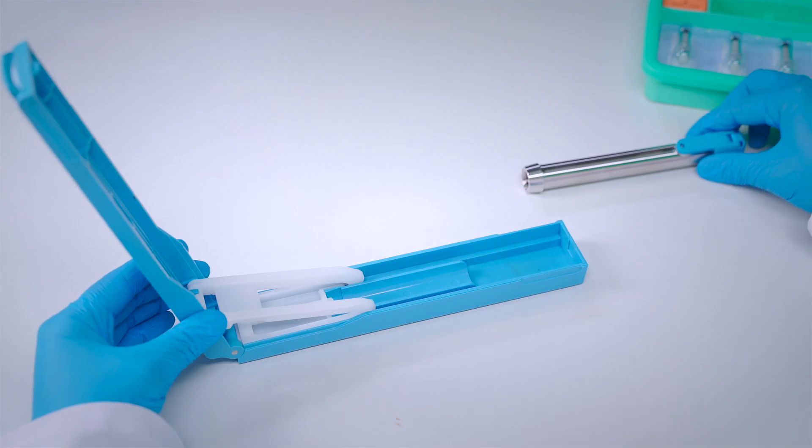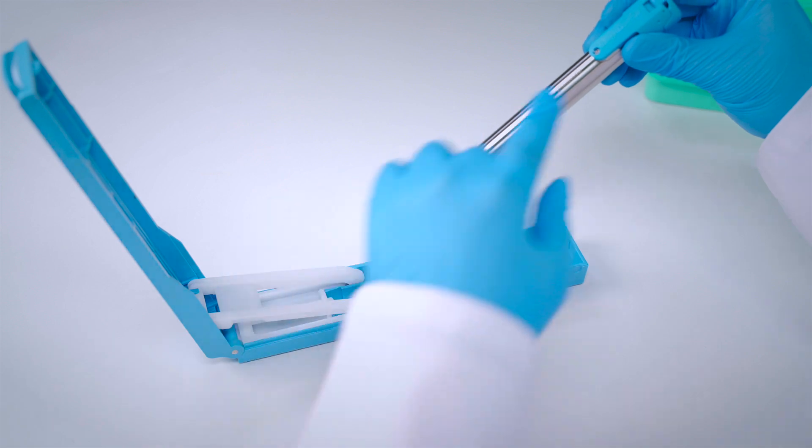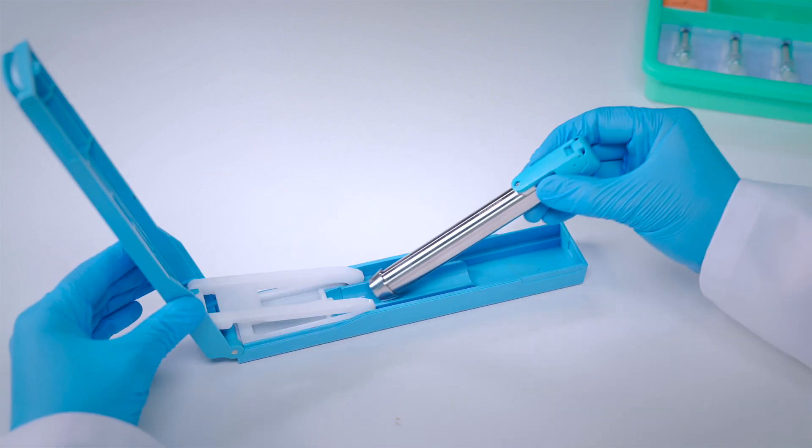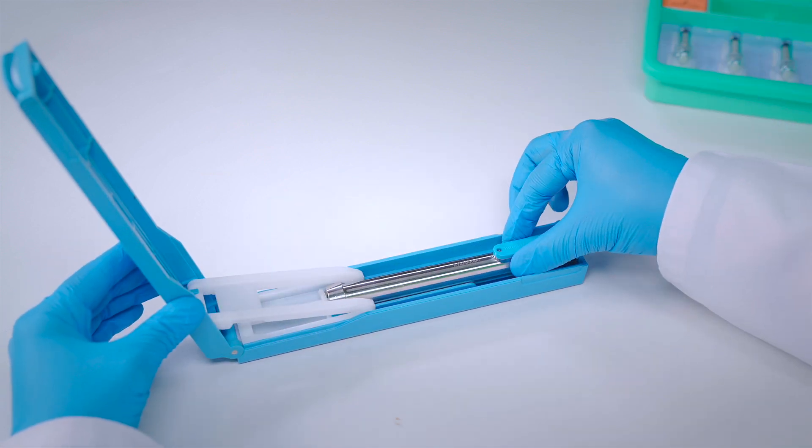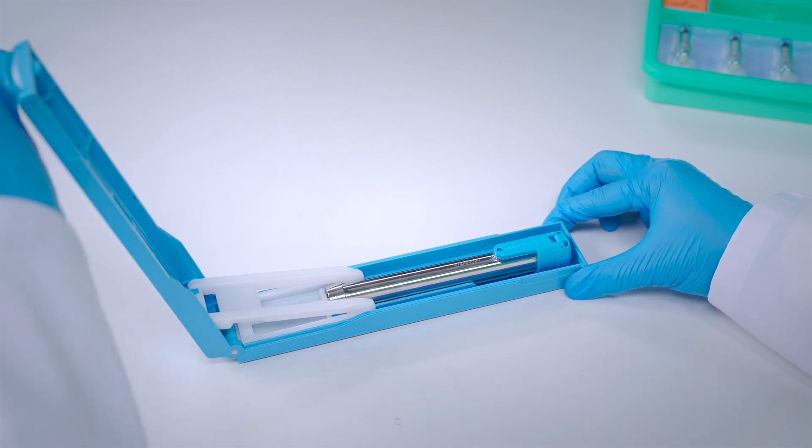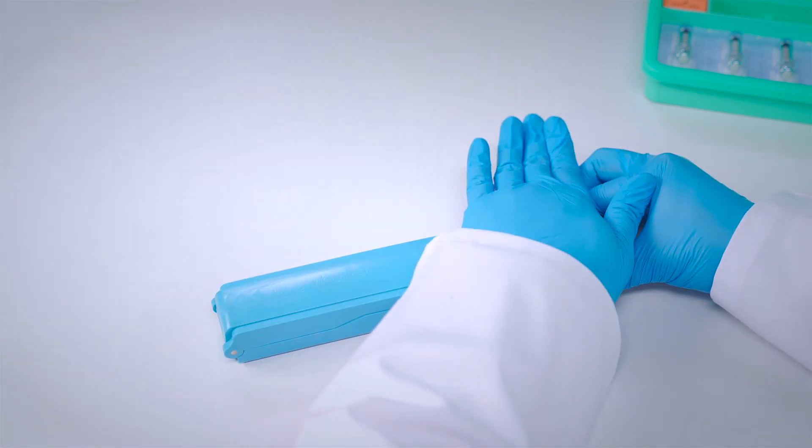Insert the NFIS device with the logo facing upwards. Using your palm, firmly push down the loader's top lid where indicated.